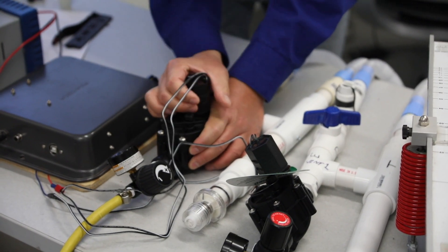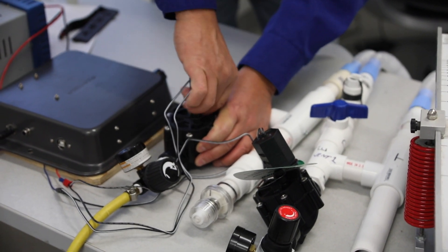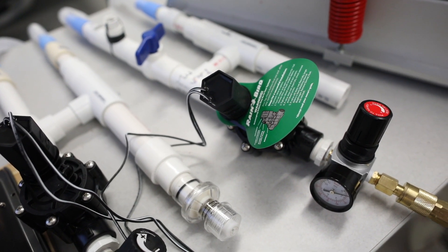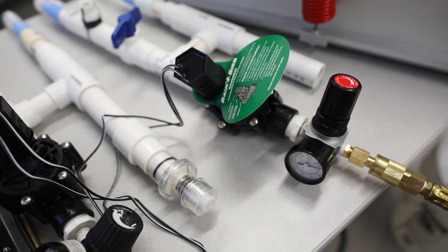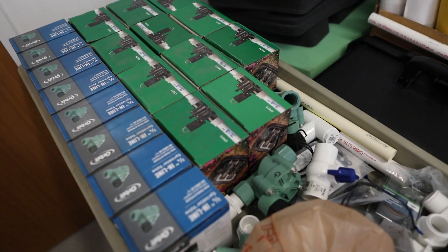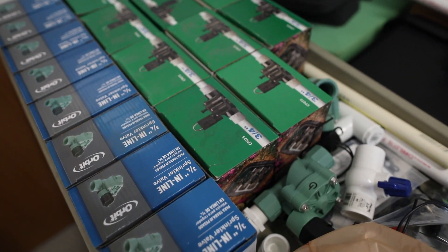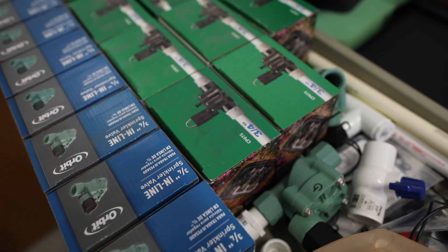I built a ventilator when I was a graduate student at UF, so it was not a matter of can we design a ventilator, because that question was answered a long time ago. It was can we make it safe with non-ventilator parts, and that's really our project. But now as it gained momentum, the larger companies are looking at us.